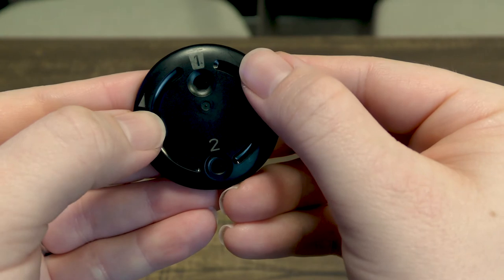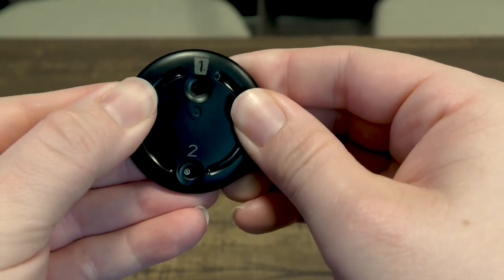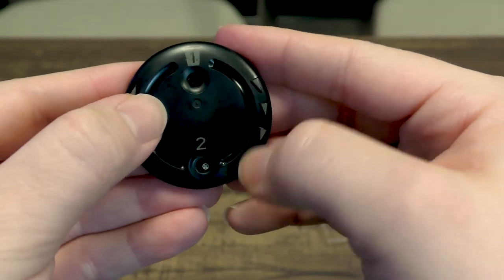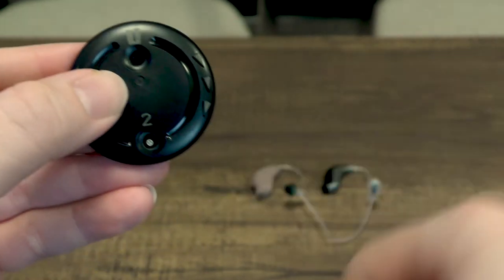So what you do is you want to follow the arrows with your finger and spin it to get a new filter present. So you kind of press down, you hear it kind of click open and you'll see a new filter present right there.